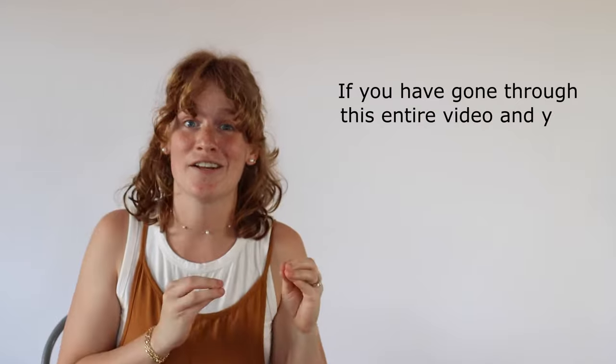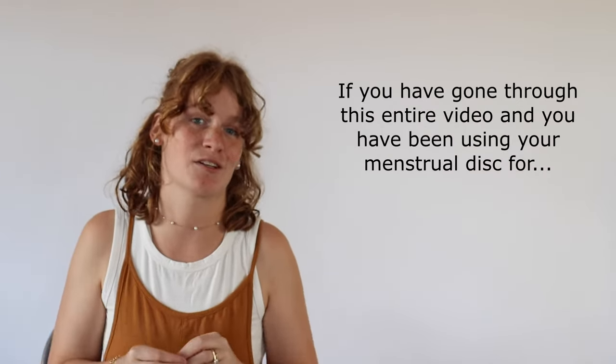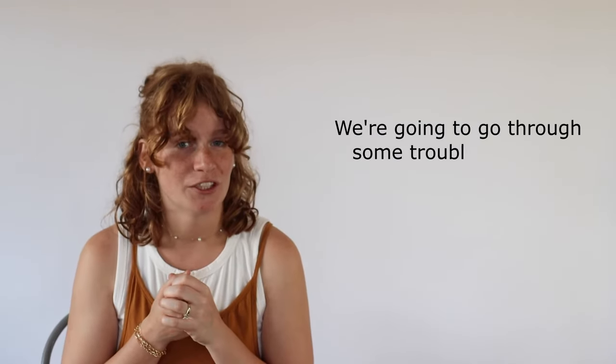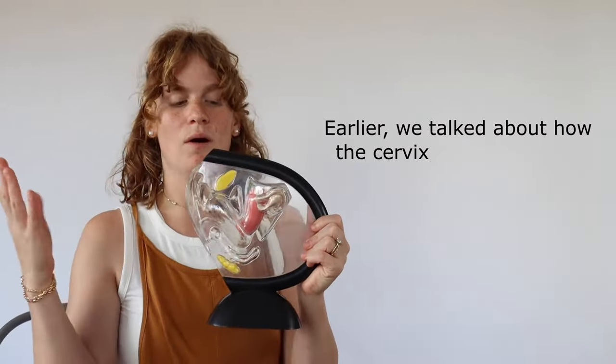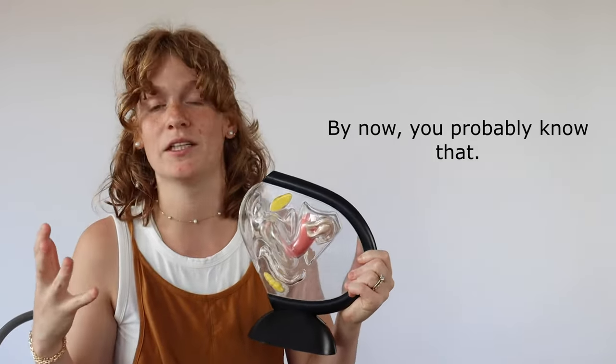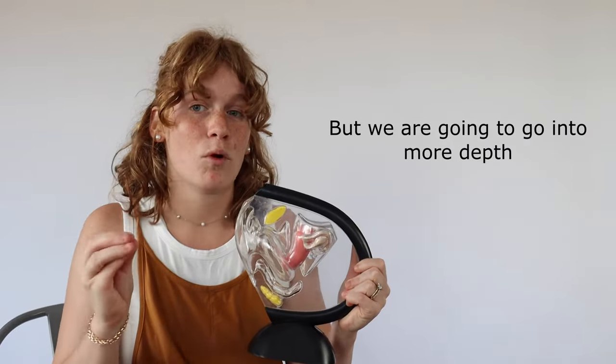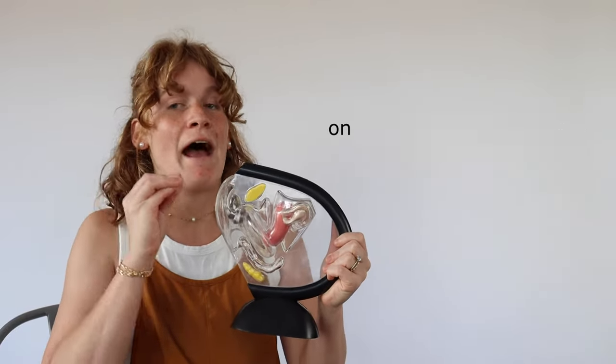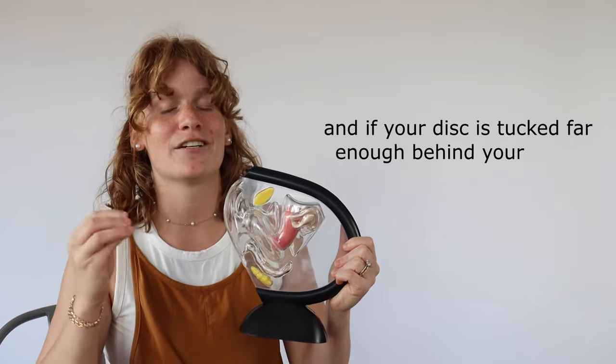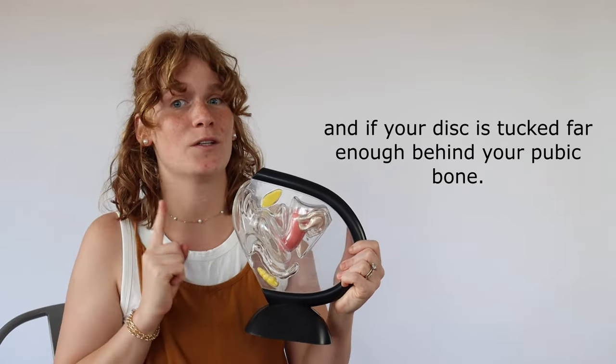If you've gone through this entire video and you've been using your menstrual disc for two to three periods and it's still leaking we're gonna go through some troubleshooting. So earlier we talked about how the cervix and the pubic bone are really important. By now you probably know that but we're gonna go in more depth on how to figure out if your disc is actually behind your cervix and if your disc is tucked far enough behind your pubic bone.